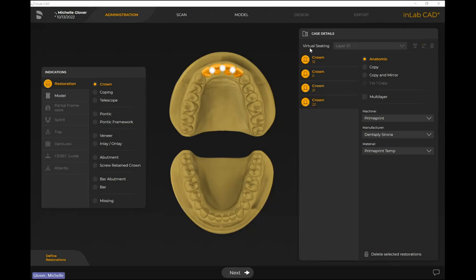Today we're going to go through one of the workflows you can use when doing a digital wax-up in inLab. This is just a workflow that I tend to use — it's not the only way to do it. In the administration, I'm filling it in as crowns for four anterior teeth, keeping it anatomic, noted as PrimePrint temp. What I'm actually going to do is create a virtually seated model at the end that I would 3D print as my study model.